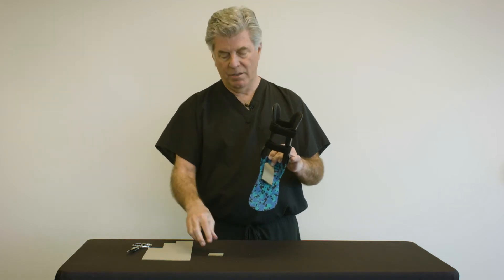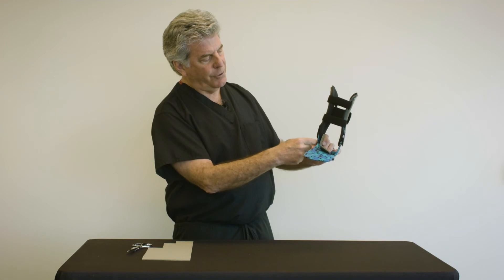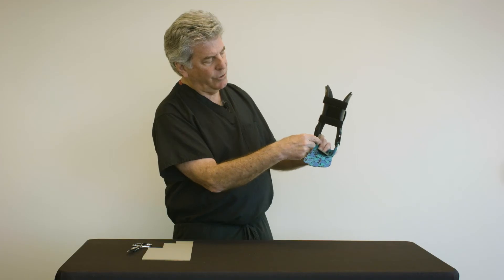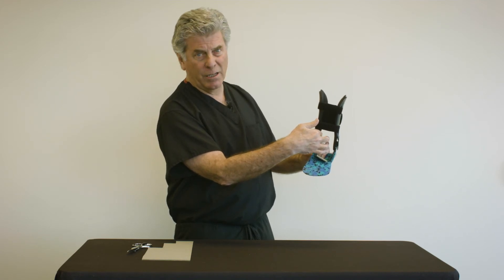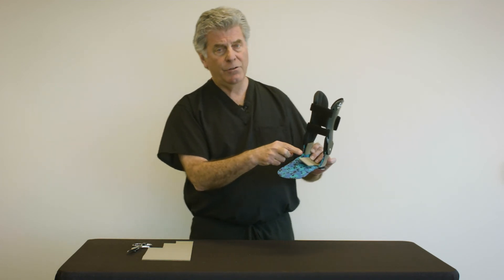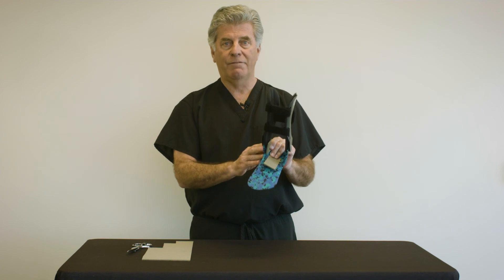If it doesn't, a second pad can be fabricated that is applied along the medial portion of the foot plate up right here. This one-eighth inch pad will displace the foot and ankle laterally and hopefully eliminate any rubbing on the medial malleolus. If these two pads fail to remedy the problem, you could consider doing a spot heat adjustment in the office.